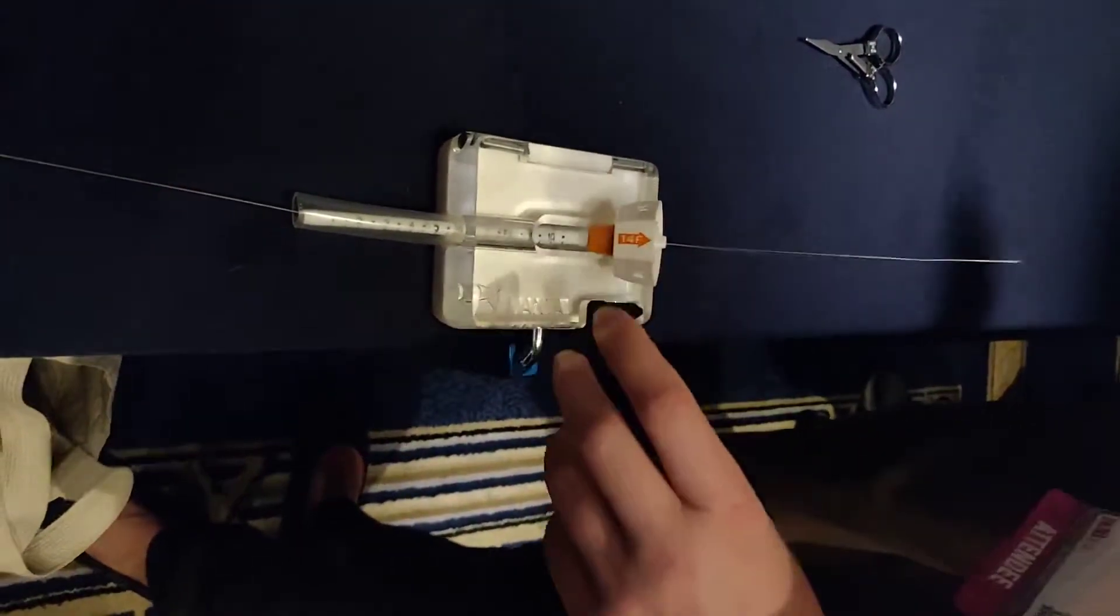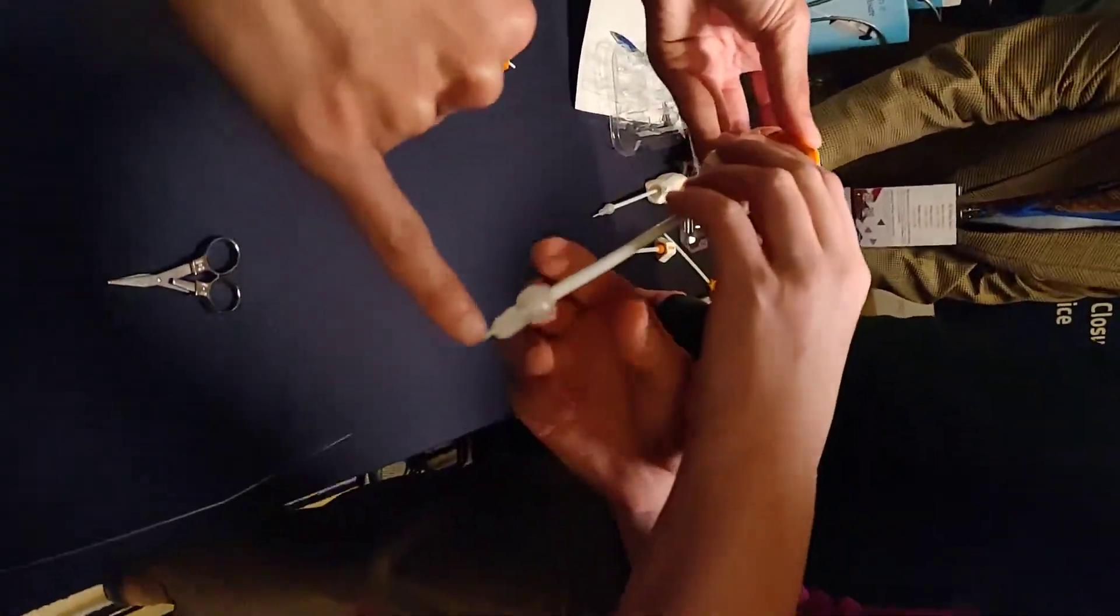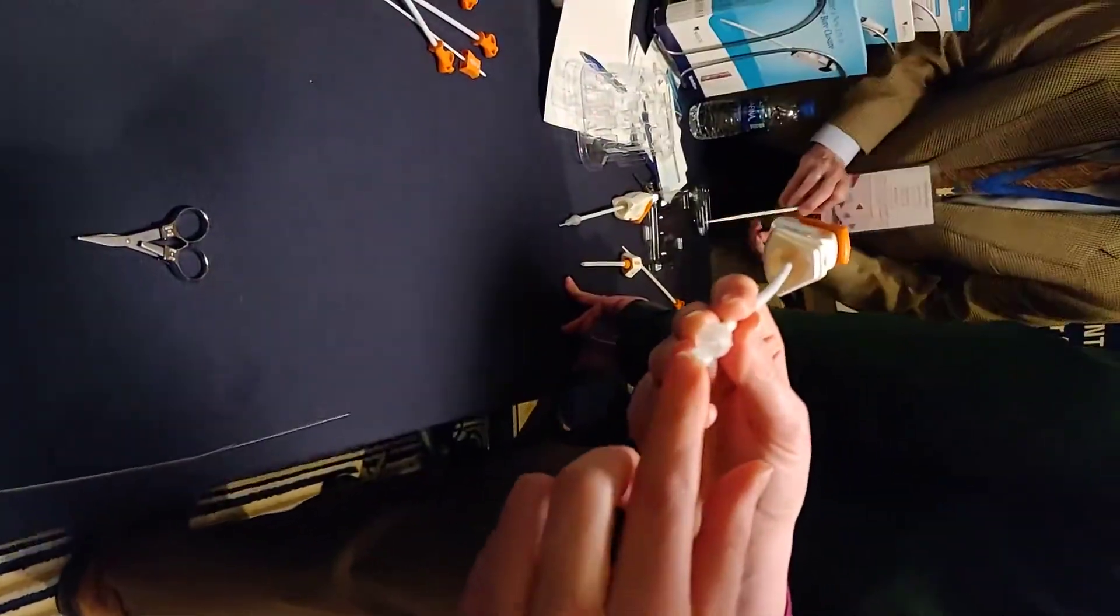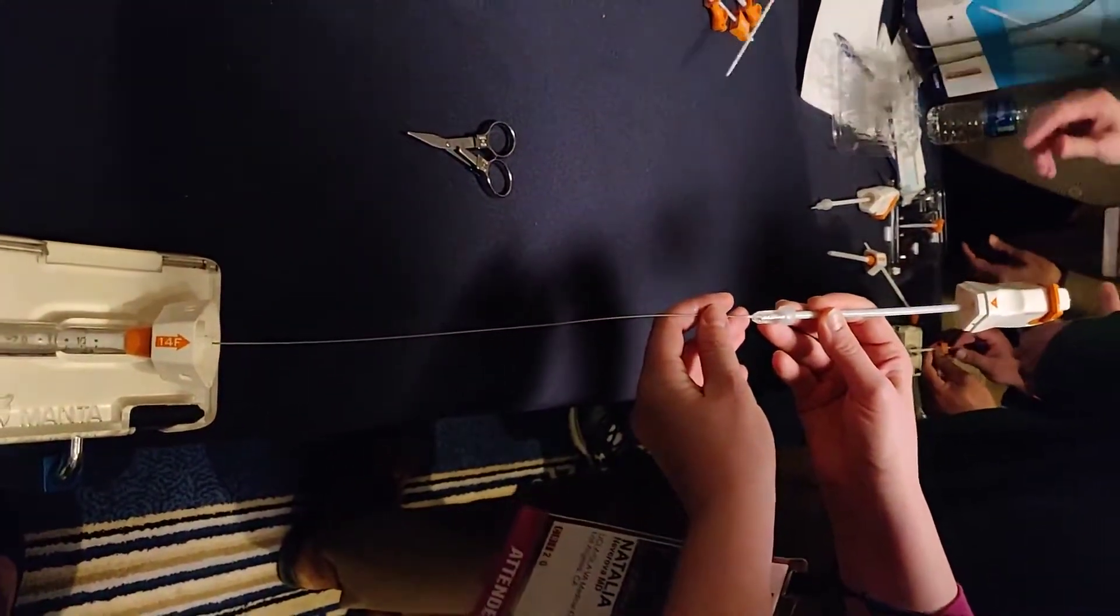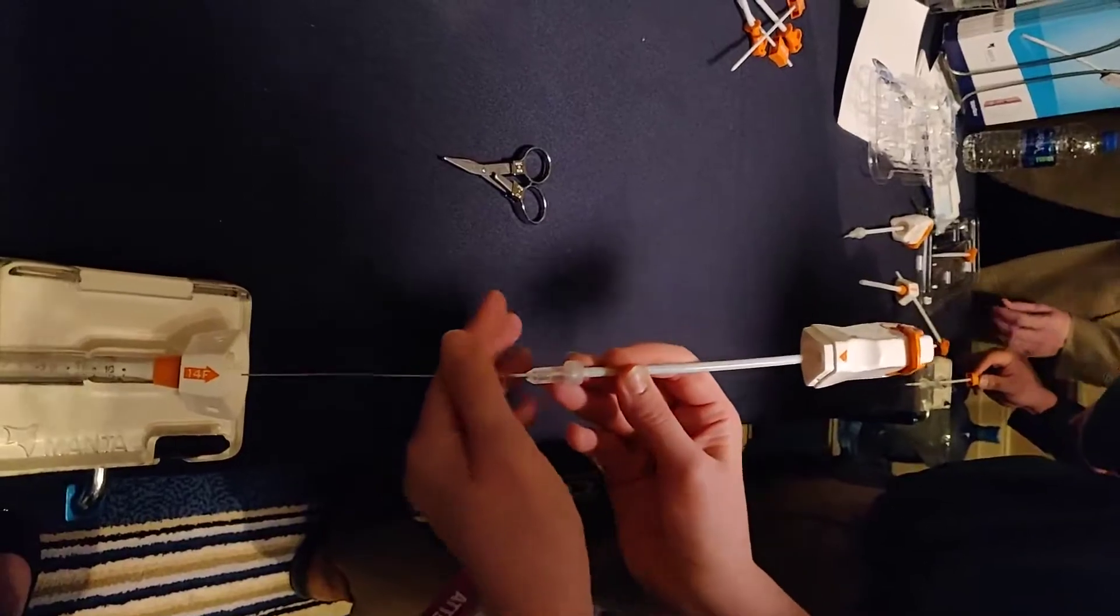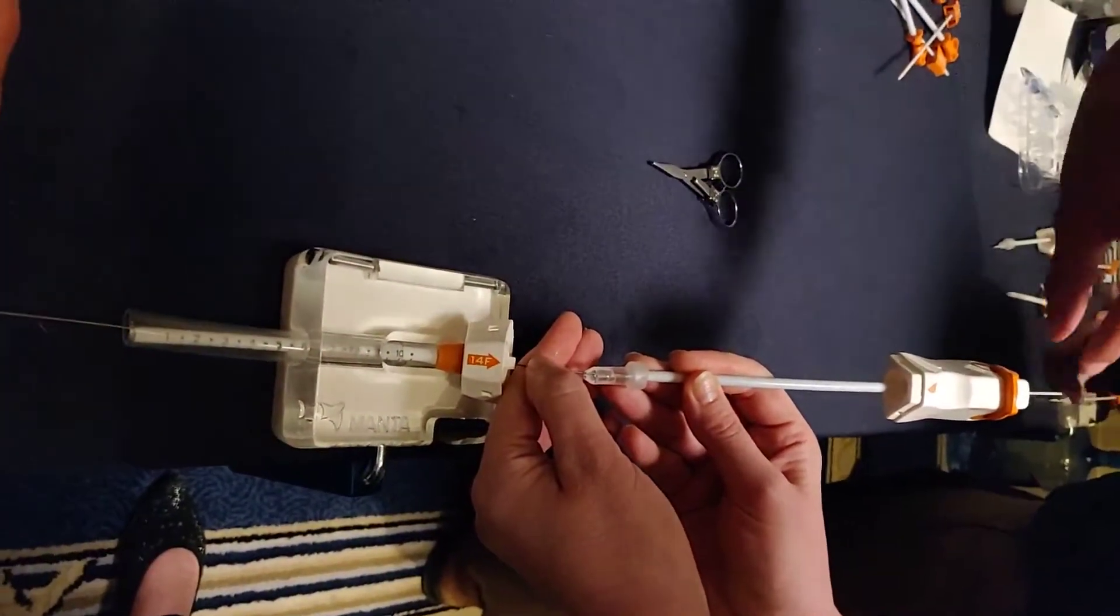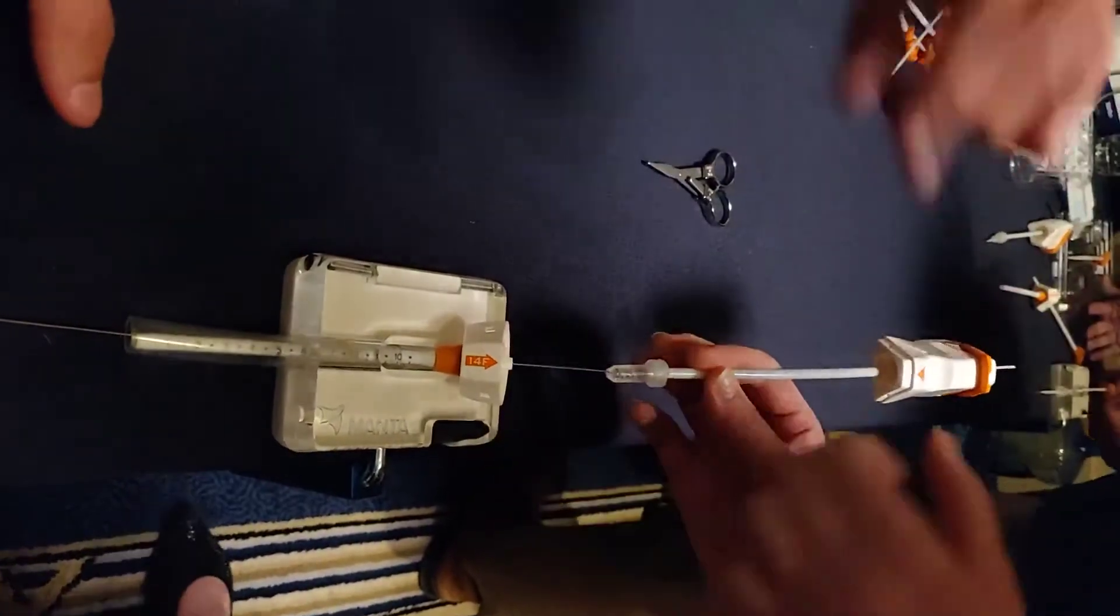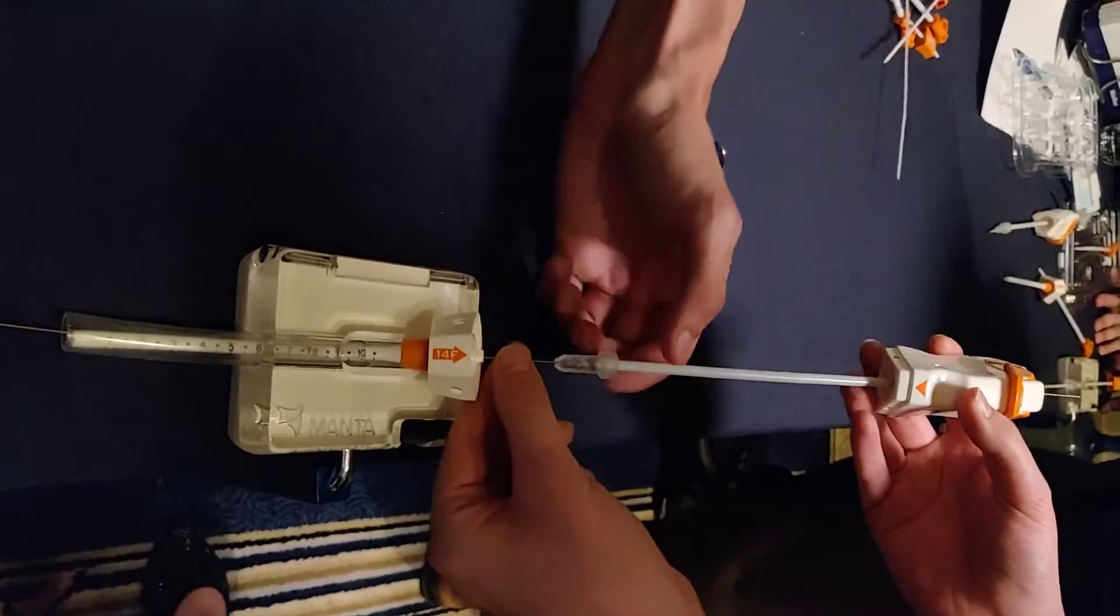Now the device. Again, that lumen is the big thing we want to focus on. You've got to meet resistance and that's okay. You're gonna have a much larger wire, so mine's pretty short. There's that resistance. In a normal case it would fall right off and I'm gonna remove it for you.